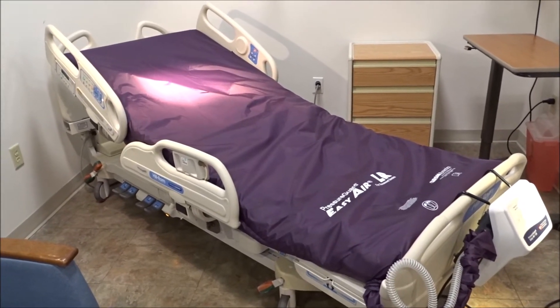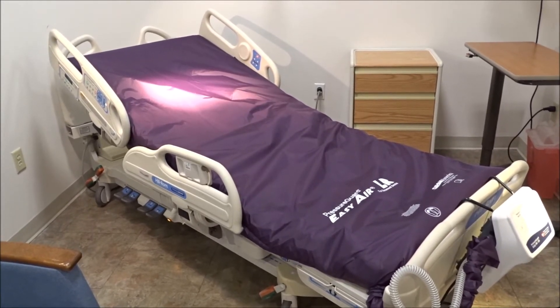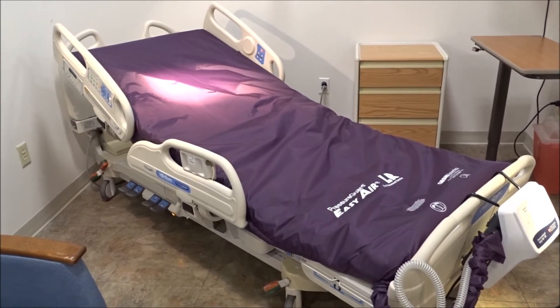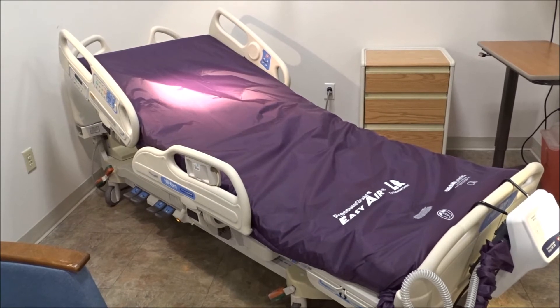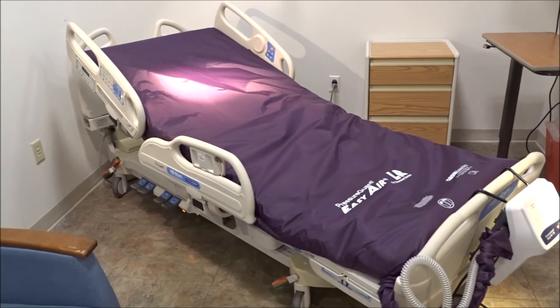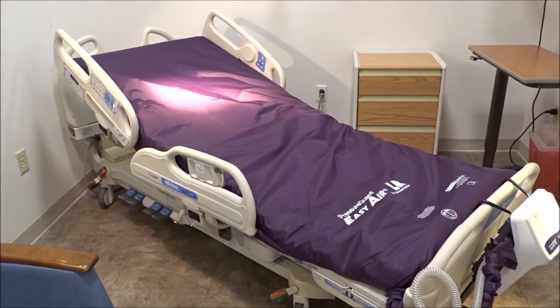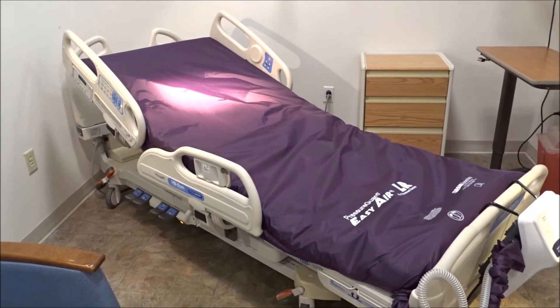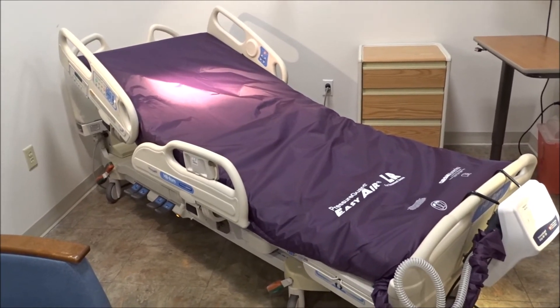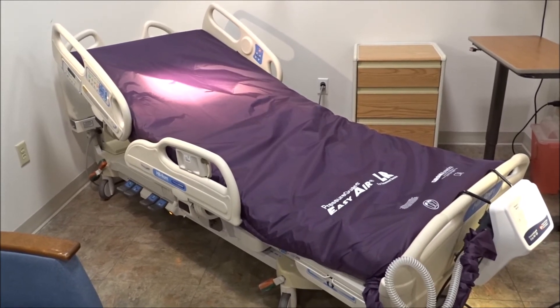For more information, give us a call — iMedical Equipment and Service. You can reach us in Richmond, Virginia at 804-929-6886, or San Diego, California at 858-263-4894. You can also get more information on our website at www.imedicalshop.com. iMedical Equipment and Service — bed sore, pressure wound, air mattress systems, and hospital bed packages: the VersaCare P3200 Hilrom with the SpanAmerica Pressure Guard Easy Air LR mattress system.